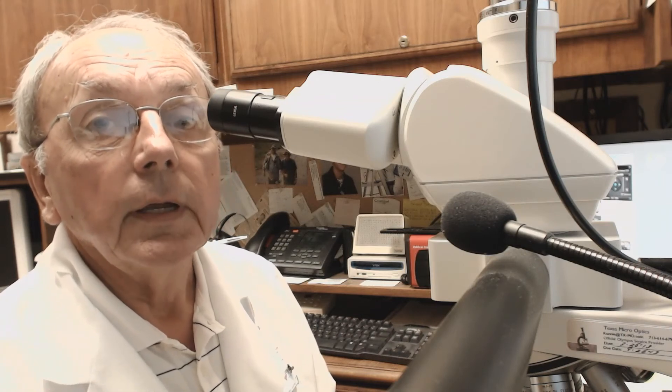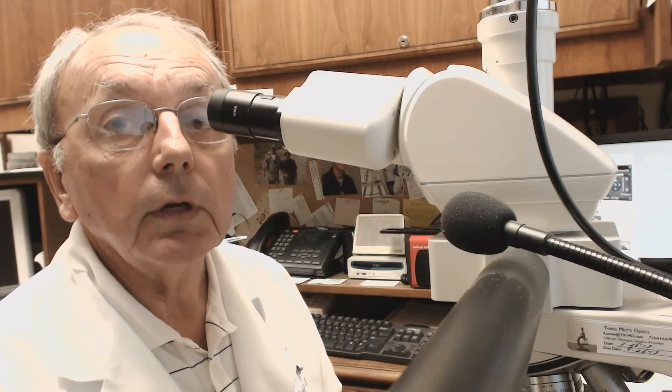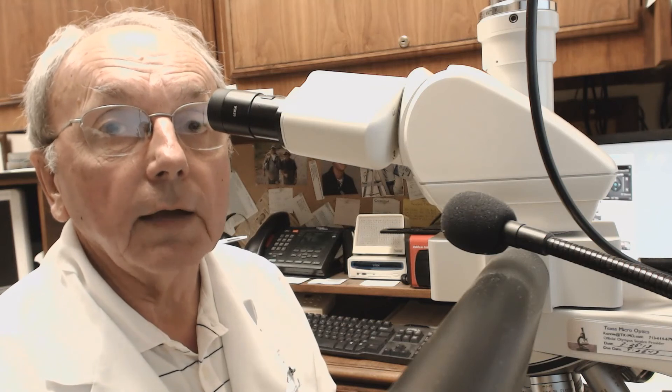This is JB Askew signing off. The RTIS system is an amazing piece of equipment — it uses your microscope and some electronics and will dazzle you and all of your colleagues when you begin to use it. You can use it for frozen sections, cytopathology, and now we've documented that you can use it for remote conferencing. It's an unbelievable system made here in Houston, Texas by Meyer Instruments.